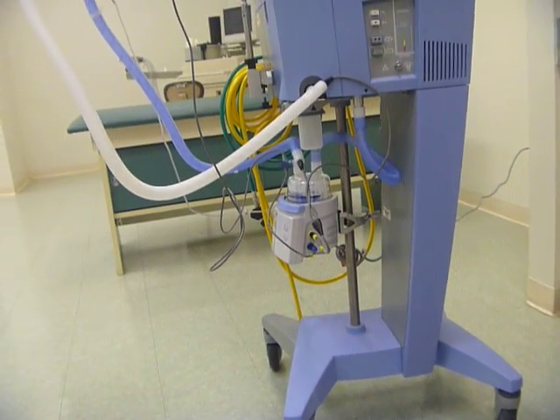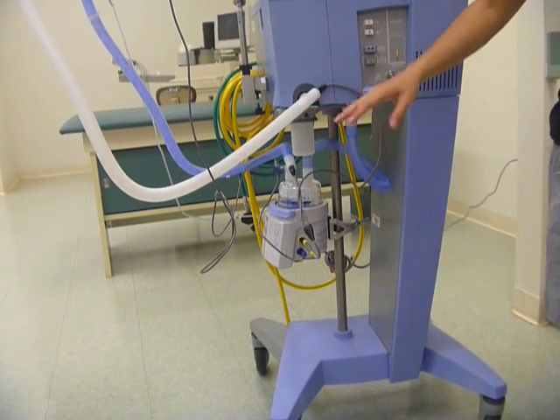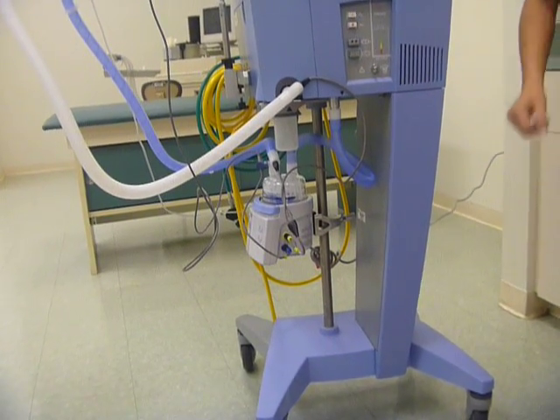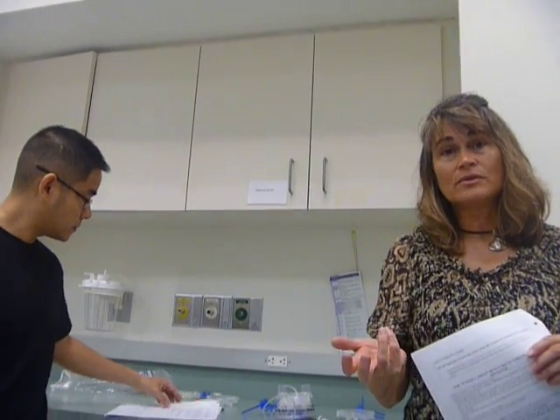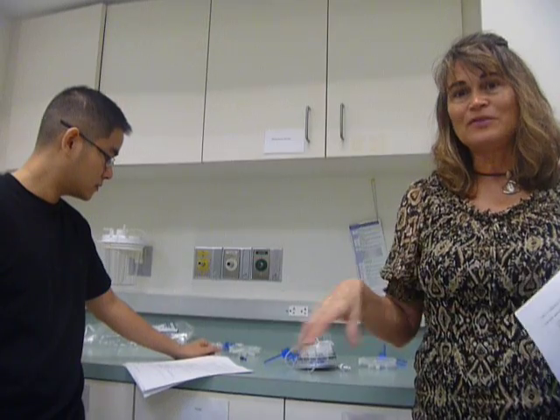So that second — it's going to just measure the temperature of exhaled air? No, no. These are heater cables. They're going to heat up the circuit so that will prevent the air from cooling. Because if it cools, it's going to create condensation — there's going to be water in the circuit. Without heating the actual circuit, as the air travels through it cools down, and cooler air is not going to hang on to water, and the water is going to condense. So you would have a lot of water sloshing in the tubing. By keeping the tubing warm, that water vapor will stay in the flow of gas. So that's the reason for it.